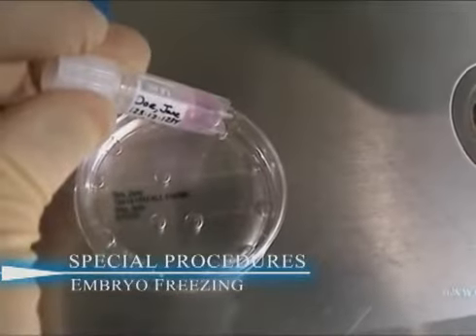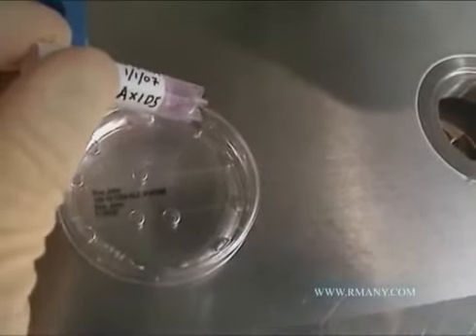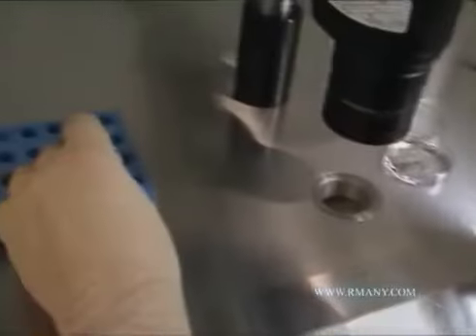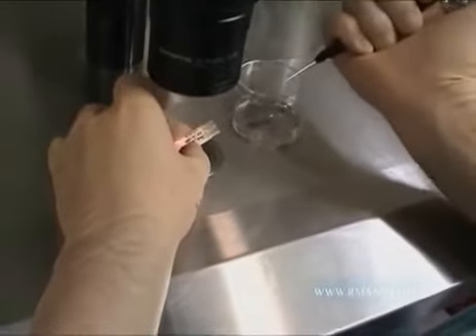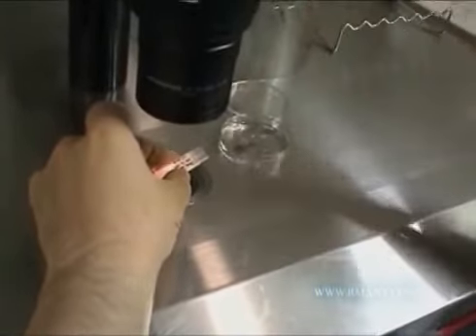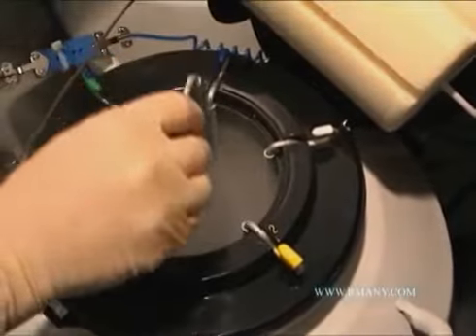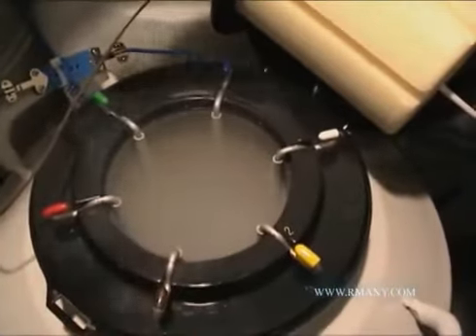Good quality embryos may be frozen and stored for years. The vials in which the embryos are frozen, as well as the culture dish, are both witnessed by 2 embryologists as the first step in this procedure. The embryos are then moved from the culture dish into vials for frozen storage. The vials are stored in liquid nitrogen held in dewars at about -196 degrees Celsius, and each patient's embryos have their own location within a dewar where the embryos will remain frozen.